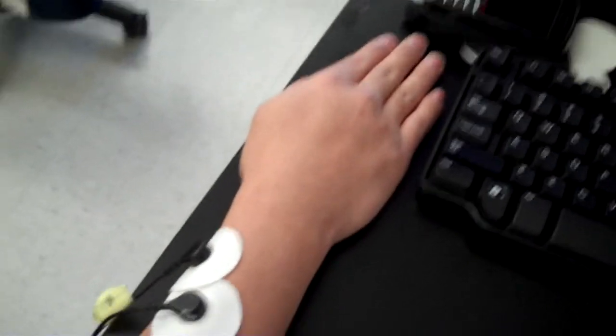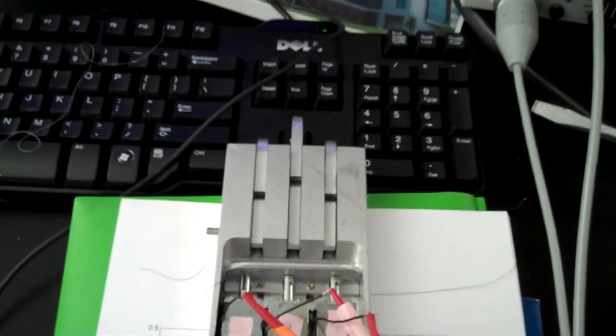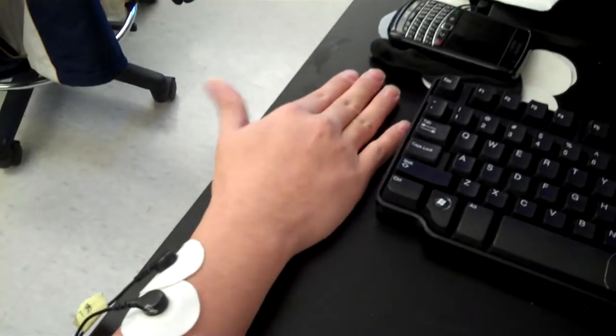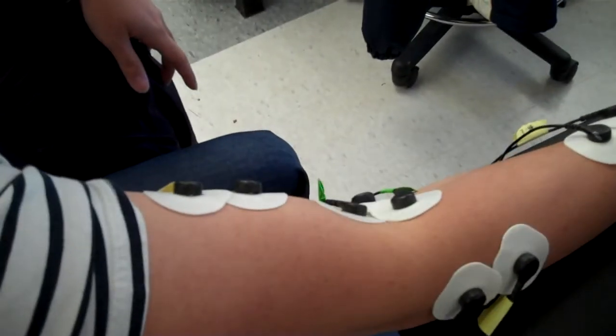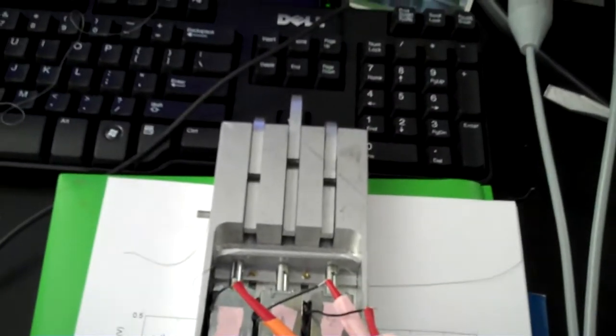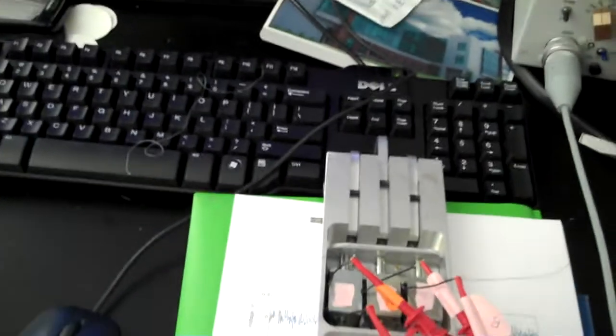So Edward, this would be movement to the right. He moves his fingers like that, and to the right you see the right clicking. Left movement, left key types. And then here's the flip on Tetris — as you can see, the top key moving there. Now we're going to attempt to play a little more Tetris, show the device in action.